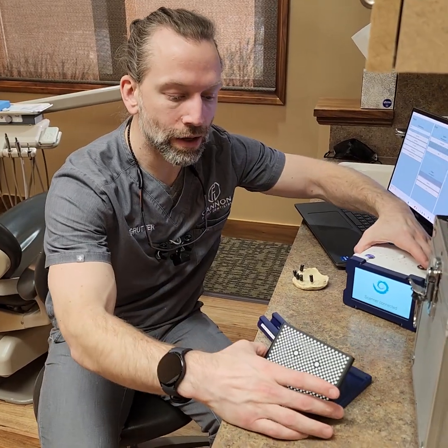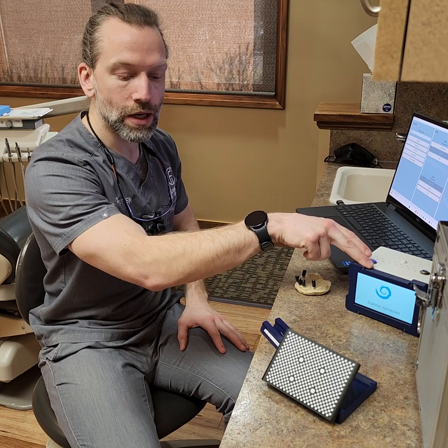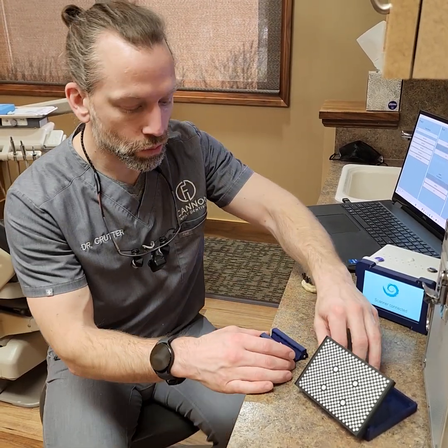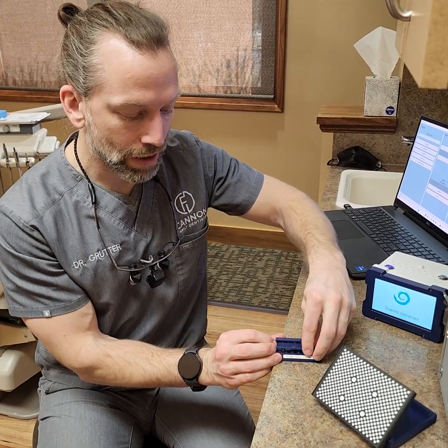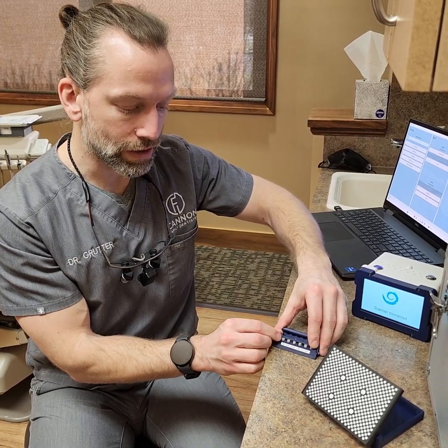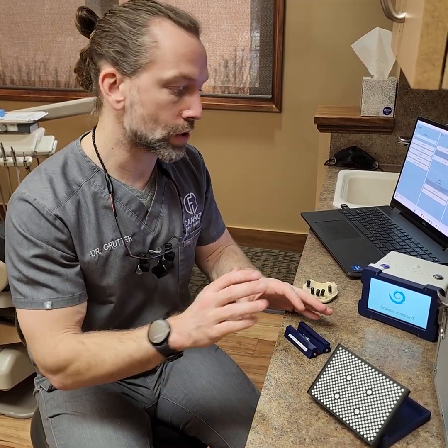Here's the unit. It comes with a calibration panel that you have to do every hour that it's on — it has to be recalibrated to ensure that it's very precise and accurate. It also comes with six photogrammetry scan bodies — I've got five of them on right now — and six intraoral scan bodies as well. You can of course use your own, but it comes with those.